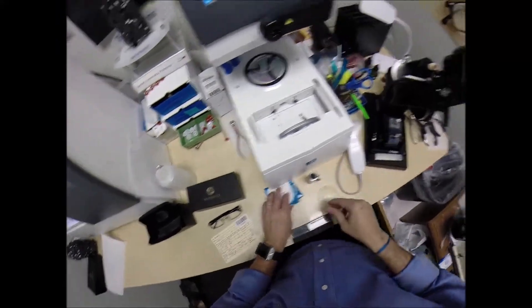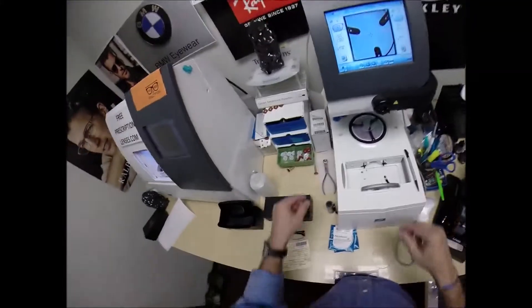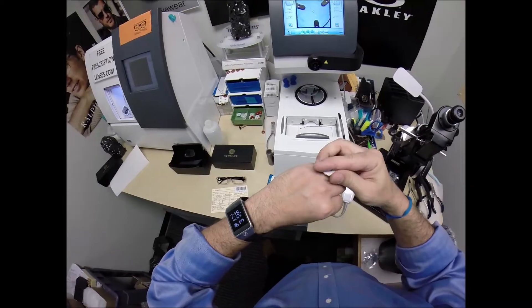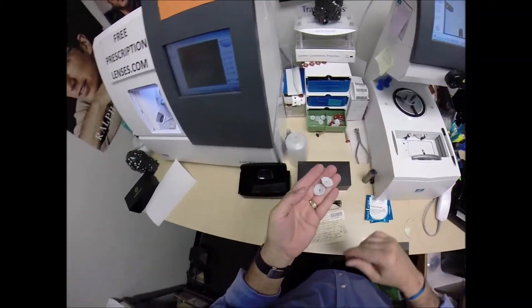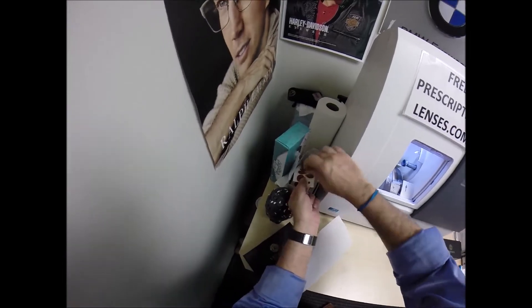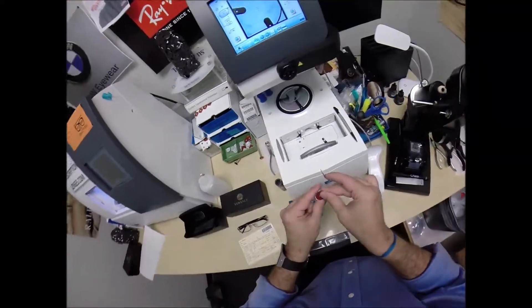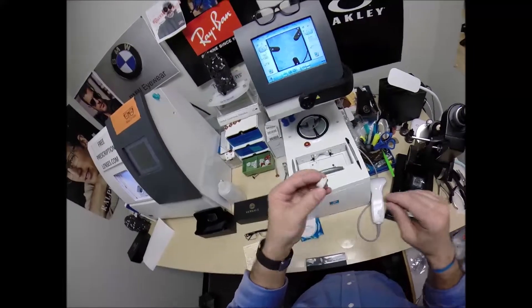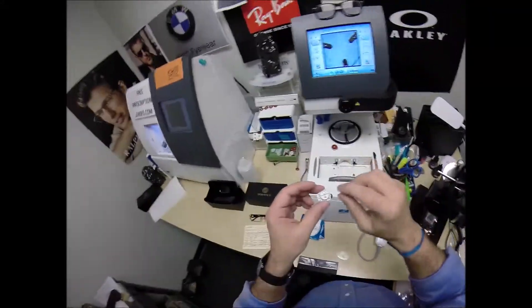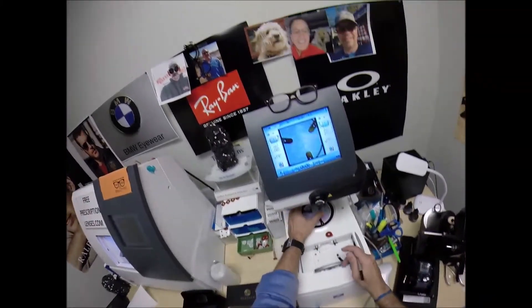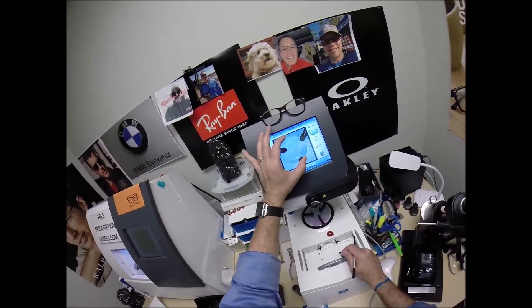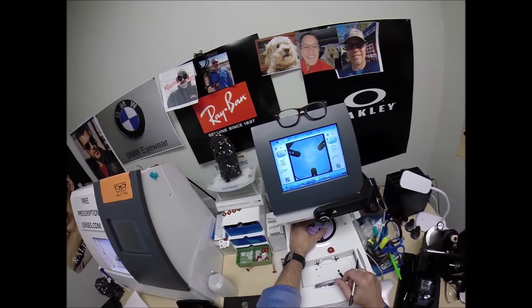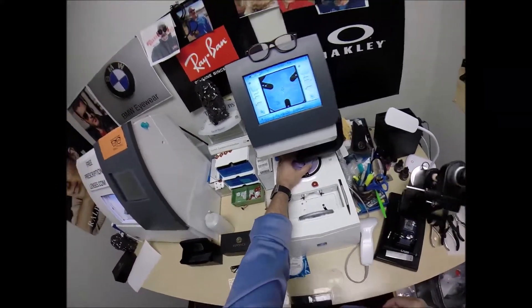So this is a block, or as I like to call them, Jenny from the block. Jenny from the block just got a big old ring for a one million dollar rock from A-Rod. But I need to attach this to your lens while it's cutting. So I need two double-sided adhesive stickers. The black side is the sticky side. Put that one on the first block. Pull the paper away to make the black side sticky. On the back, that silver button is a magnet. It's going to attach itself to another magnet there in the arm. The arm's going to come down and place the block onto the right lens.